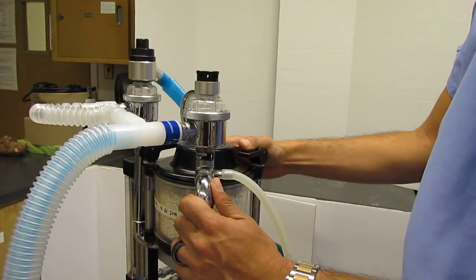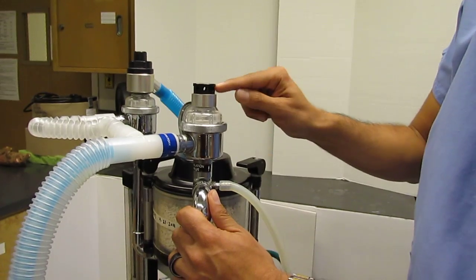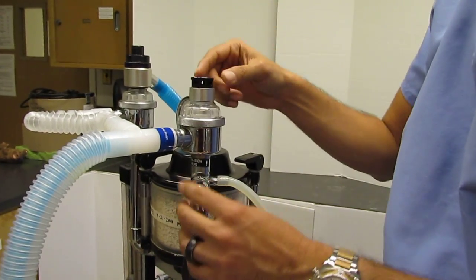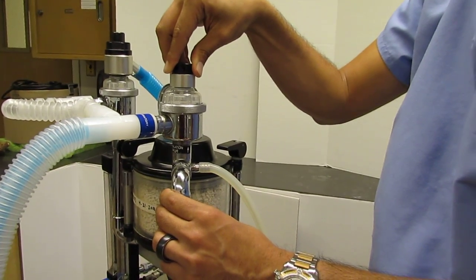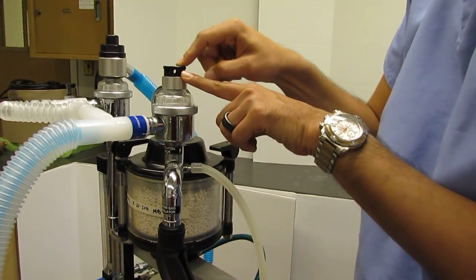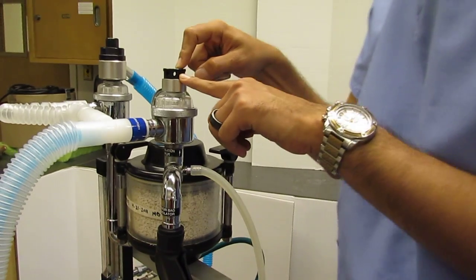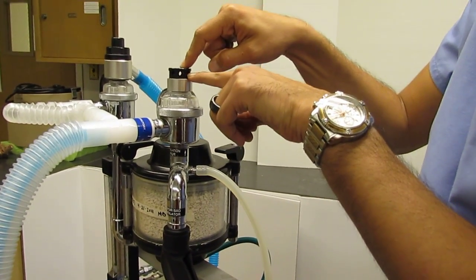then that will allow a little bit of atmospheric air into the system to stabilize it. Okay? So, that's a safety feature, very important safety feature, so that we don't get below zero in our pressure.